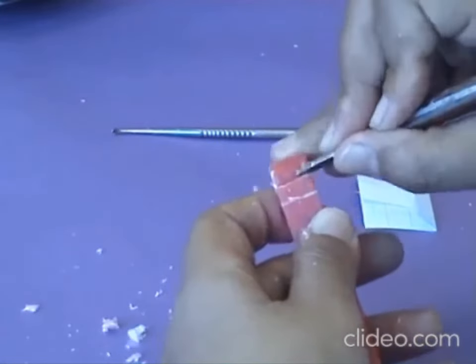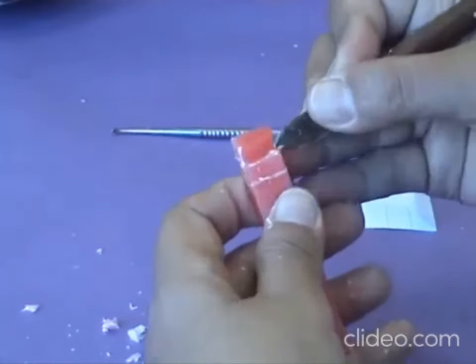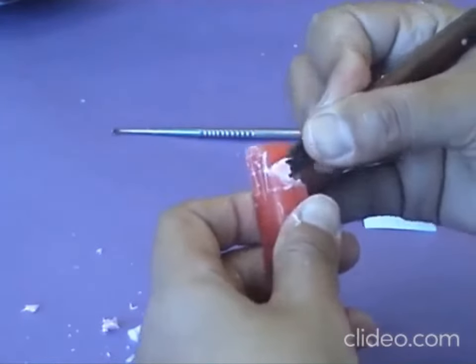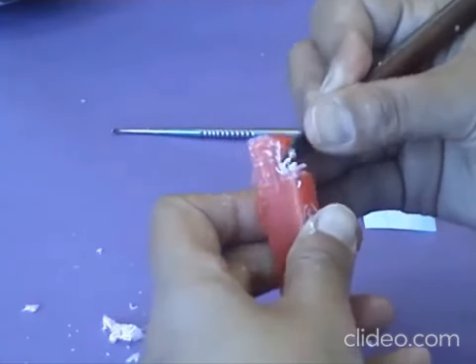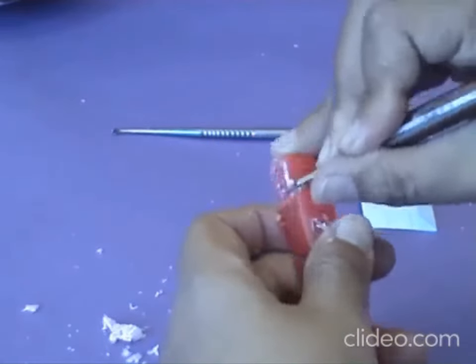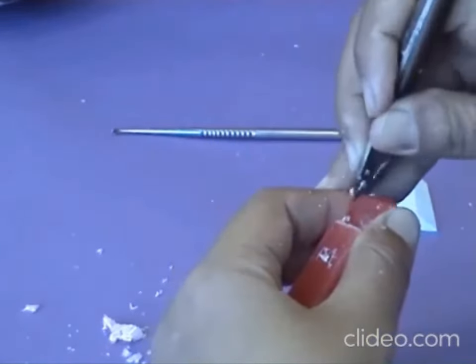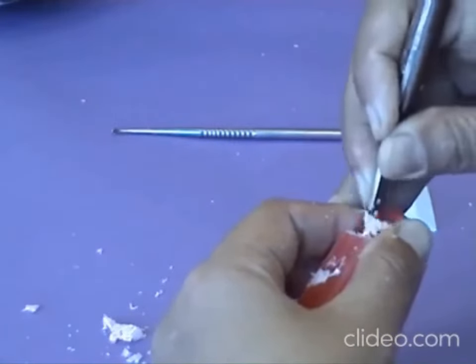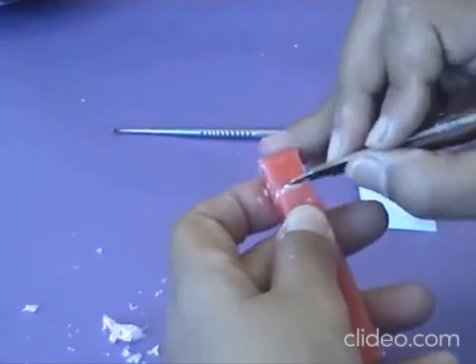Always maintain finger support during cutting and finishing — never work without support from both the other hand and the cutting hand. Then for the root portion, go straight downwards, removing all excess wax. Finish this surface and move to the next one.